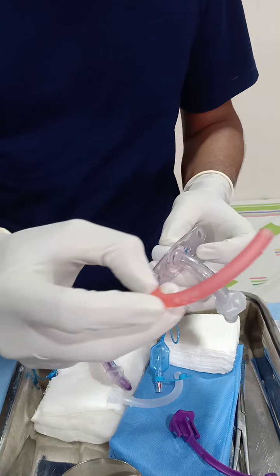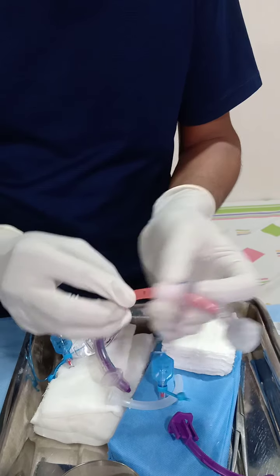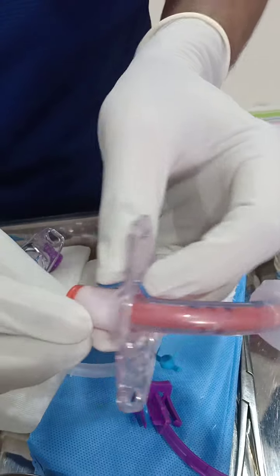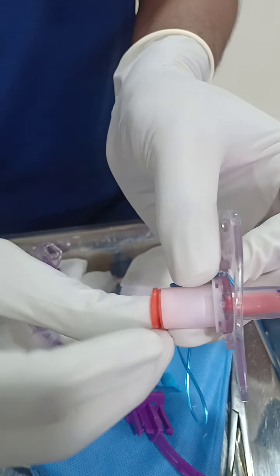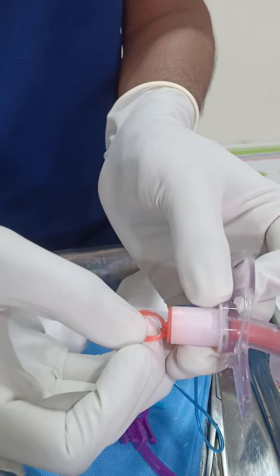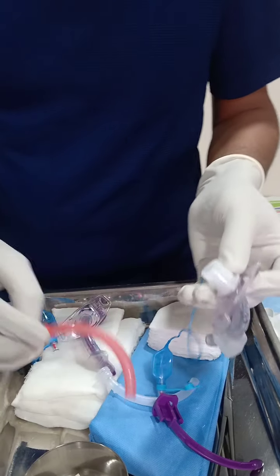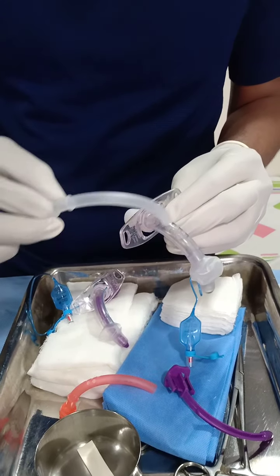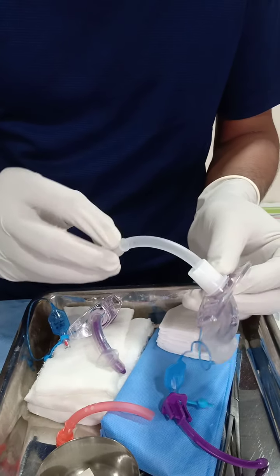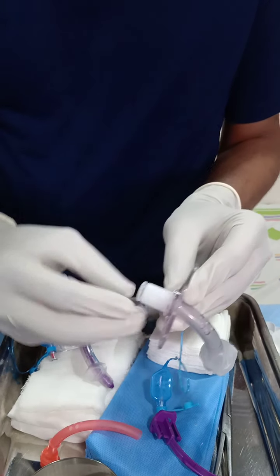There are two inner tubes available. If you want the fenestration function to continue, you introduce the inner tube with fenestrations — you will see that the fenestrations match each other — and the tube should be pushed well so that it locks. There is a ring which you can pull to take the tube out. If you do not want the fenestrations to work, you use the inner tube without fenestrations; once you introduce this one there will be no leaks and the patient will not be able to speak through it.